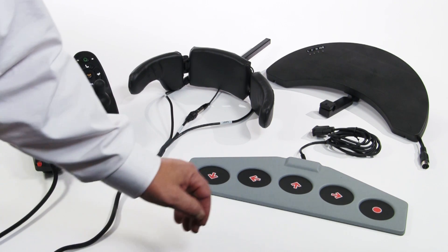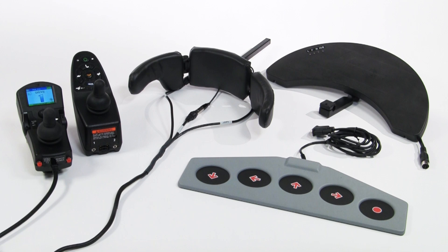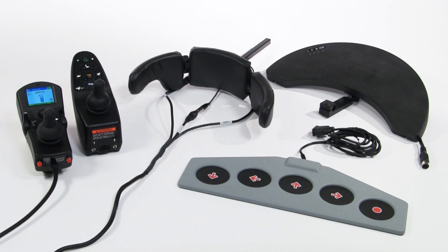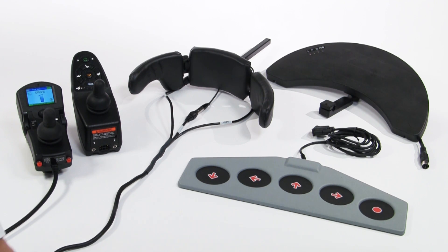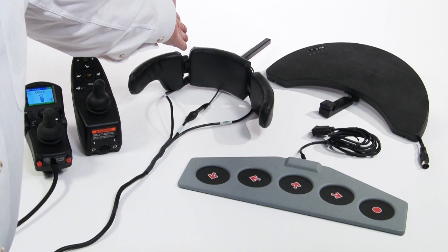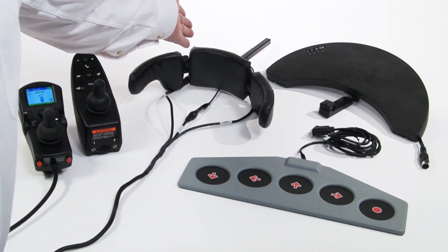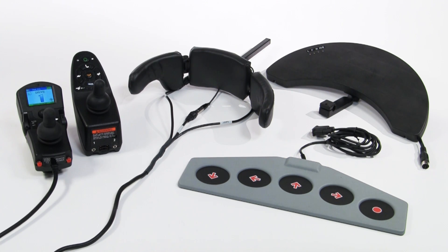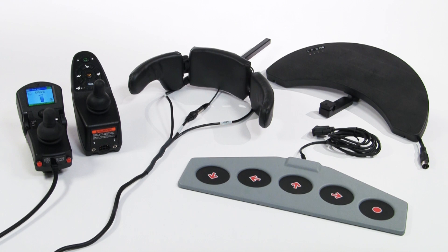Typically there are four switches in this system for the four directional quadrants: forward, left, right, and reverse. There are ways to drive in four directions when you have less than four switches — see the video on RIM or three-quadrant driving to learn more on this topic.